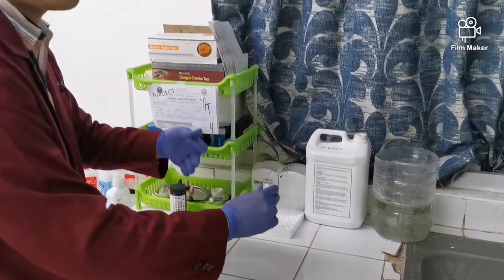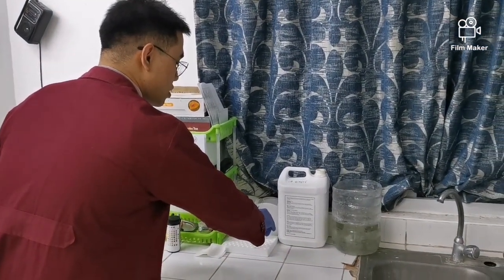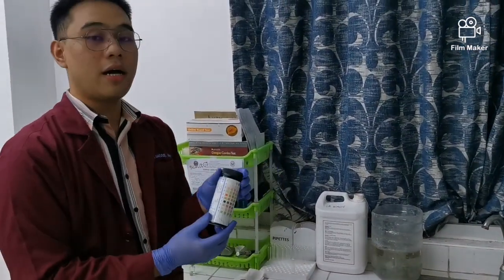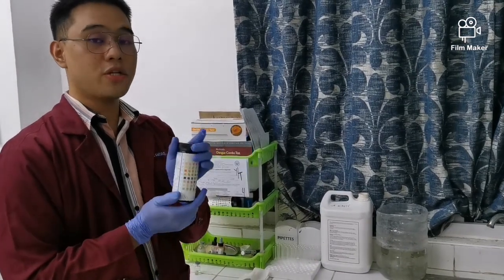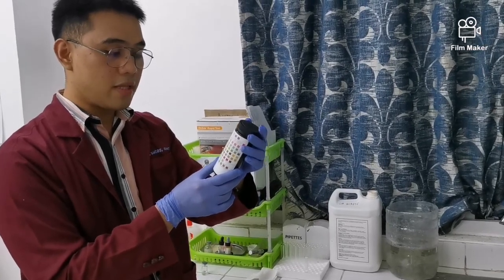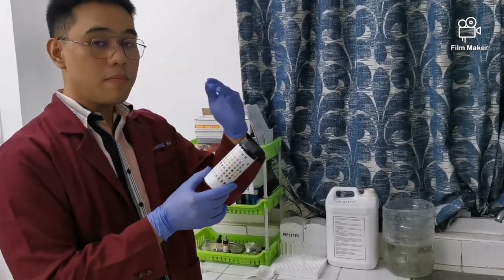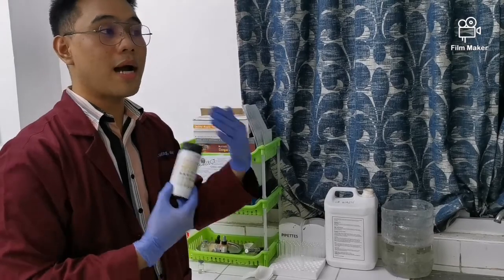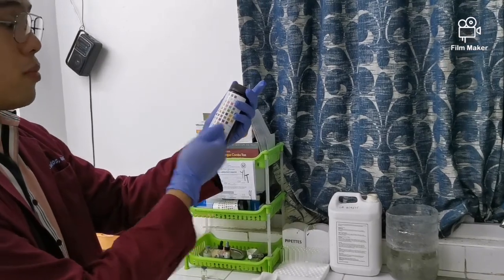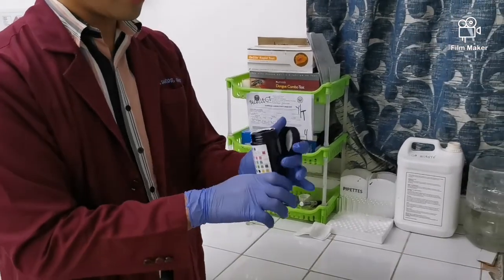After macroscopic, of course, we will do the next phase, which is the chemistry part. So, transfer lang natin tong urine on a test tube. Ganyan. And then, ito yung pinakita ko na urinary dipsticks. So, ito, na-measure na niya yung 10 parameters like our glucose, bilirubin, ketone, specific gravity, pH, blood, protein, urobilinogen, nitrite, and our leukocyte. So, each of them, they have their own significance kung magkakaroon ng reaction. Okay? So makikita nyo dito sa mga color charts, i-compare mo lang siya. But dito, meron tayong machine na gagawa nun. Okay? So ayun, demonstrate ko na lang siya.